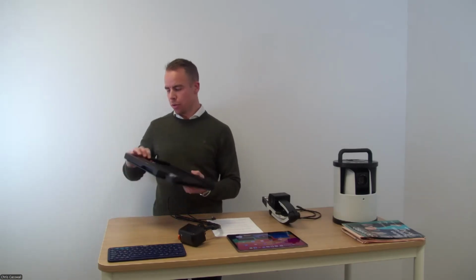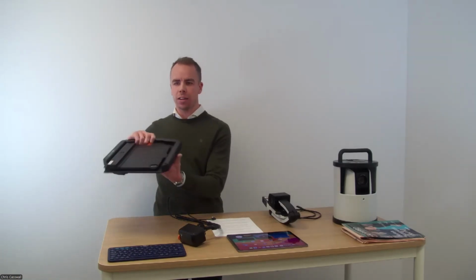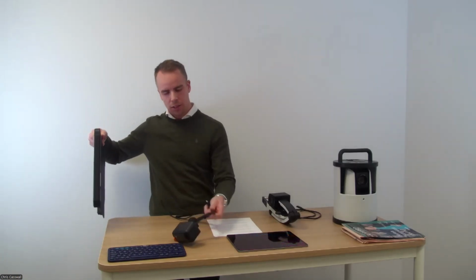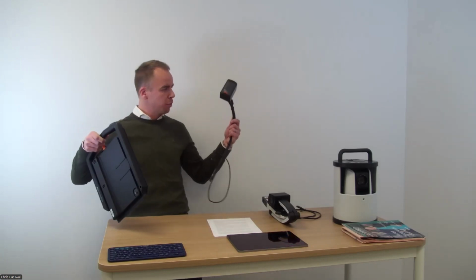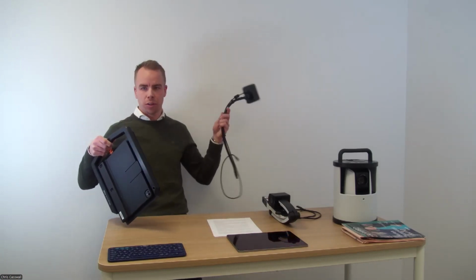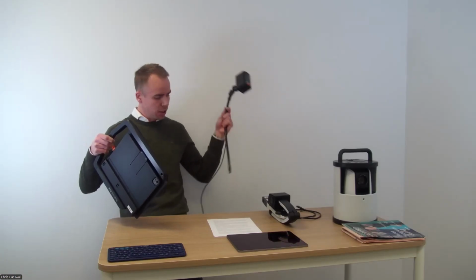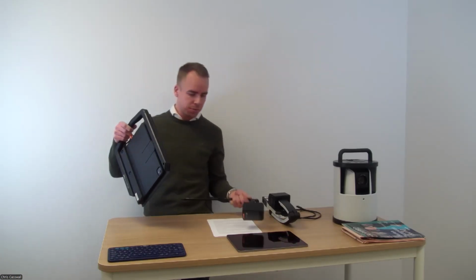I'm going to grab the iTab from the table in front of me, hold it up, so you can see that it's really flat, thin, gives you a nice handle, so it's easy to carry. If you choose to go with the full version, that's also having the external full HD camera, both for near, self, and distance viewing, it comes as a separate piece.